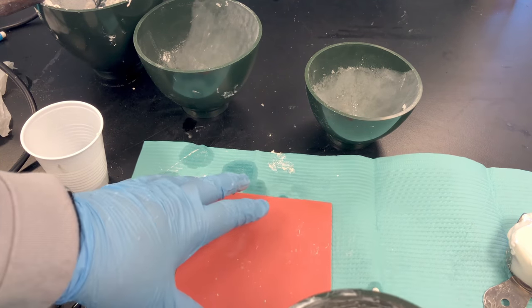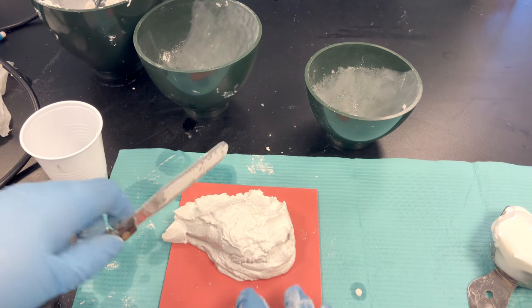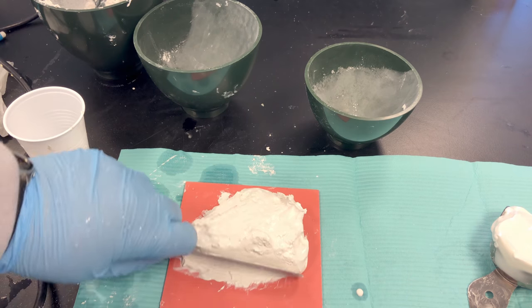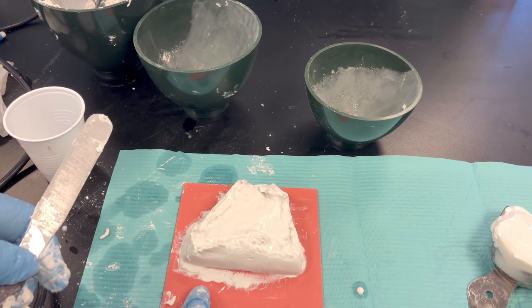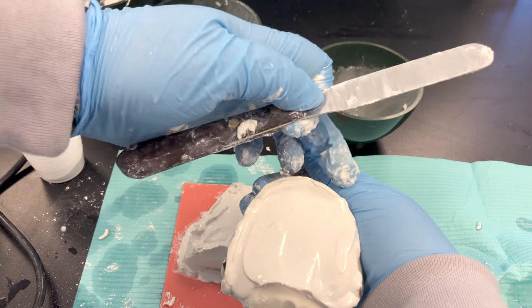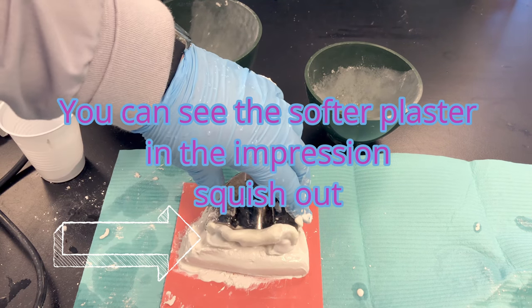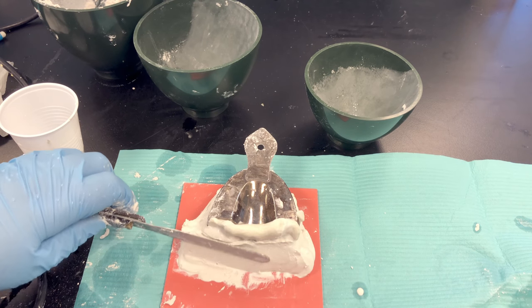Take your tile, set it on the countertop, and take your plaster. Shape it up into a trapezoid — again, push and lift. That's the trick for these bases; don't just push and pull because it's going to stick. Your base is wider in the posterior region, more narrow in the anterior, because that's the shape your impressions have. Inverted technique: turn your impression upside down, invert it, set it onto your base, wiggle it slightly into position, and slide the posterior side up to connect and meet with the stone that's in your impression.